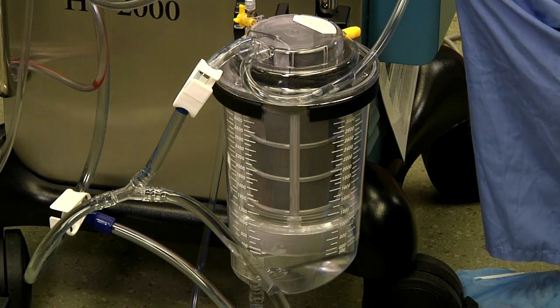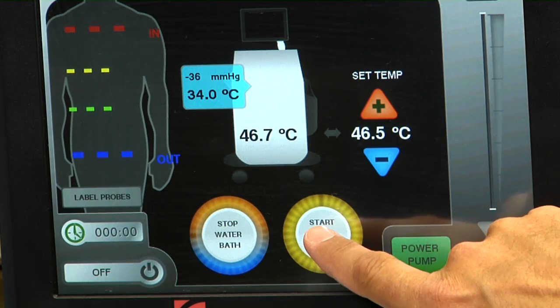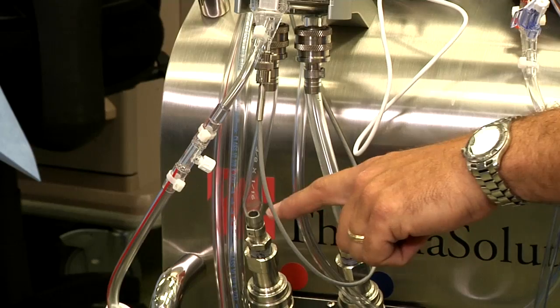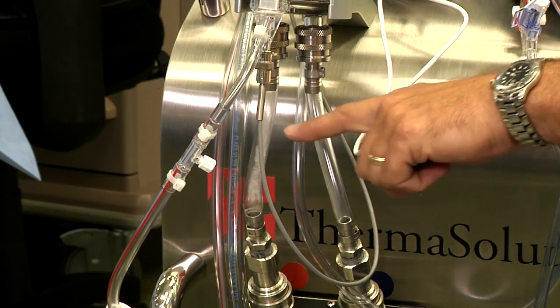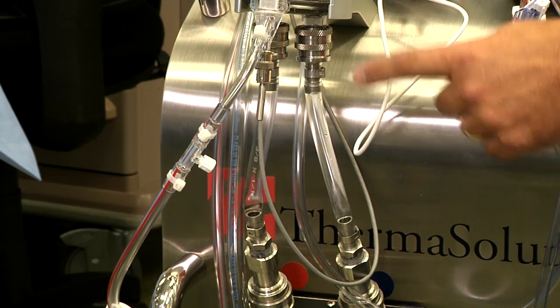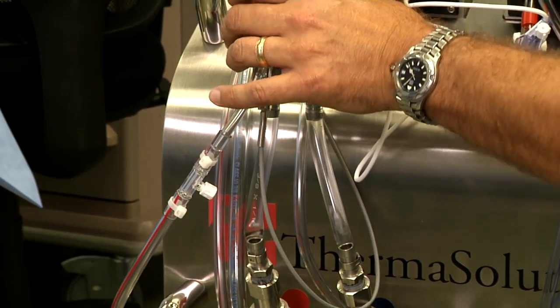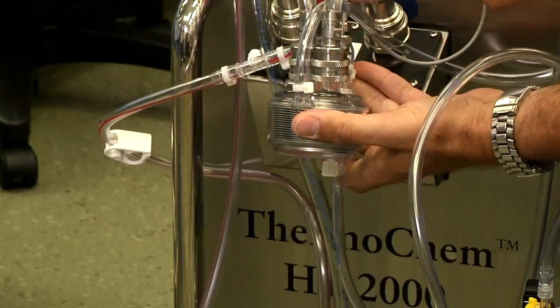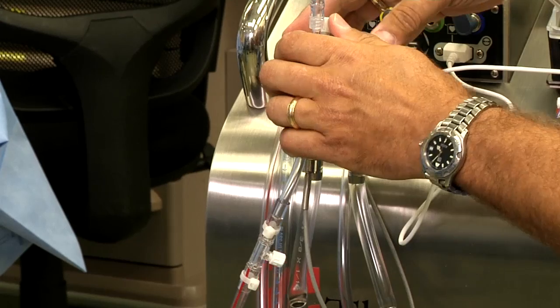While that fluid is filling in the reservoir, we'll go up to the screen and start the heat exchanger. When the heat exchanger starts, water will begin to fill from the water bath up to the heat exchanger and back down. A quick check is done to ensure the integrity of the heat exchanger, and then the entire heat exchanger is tilted forward and any additional air is cleared from the water side.